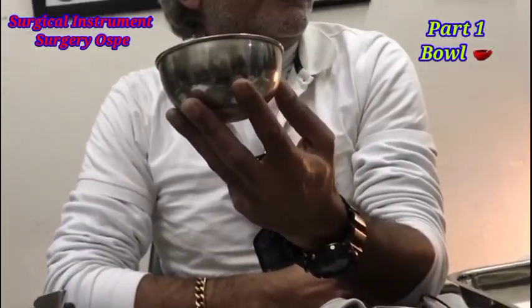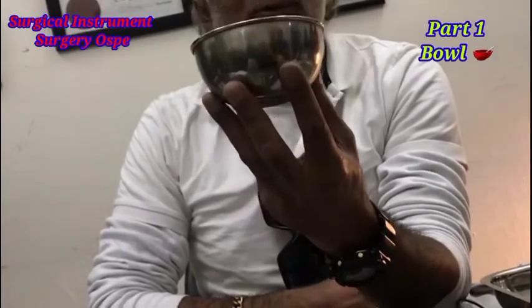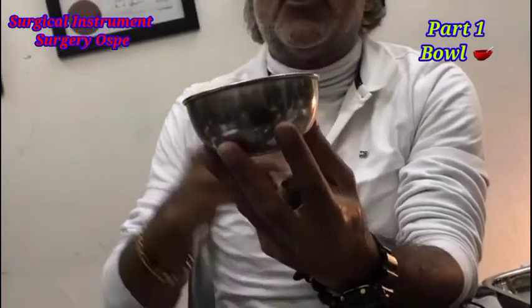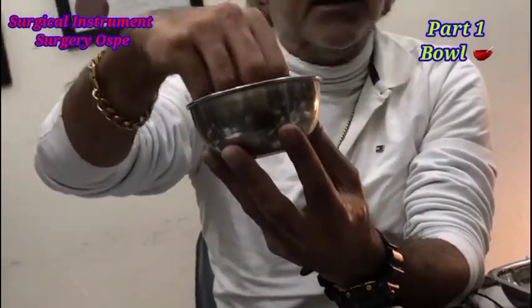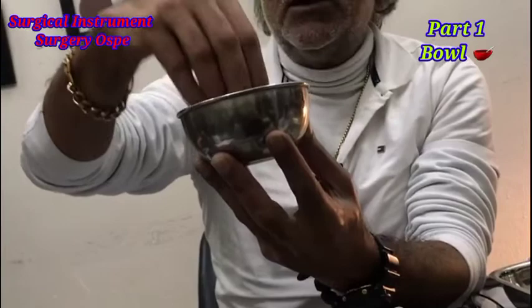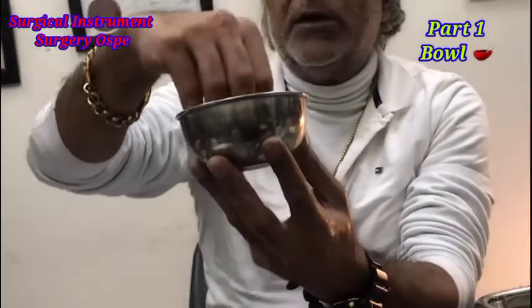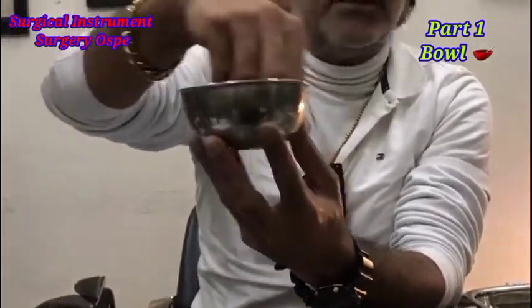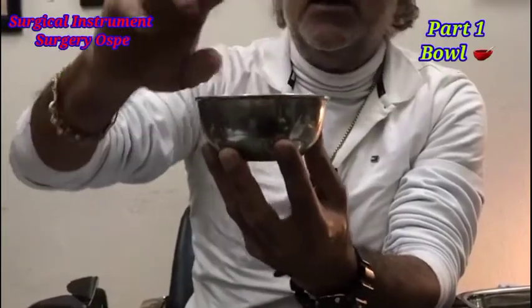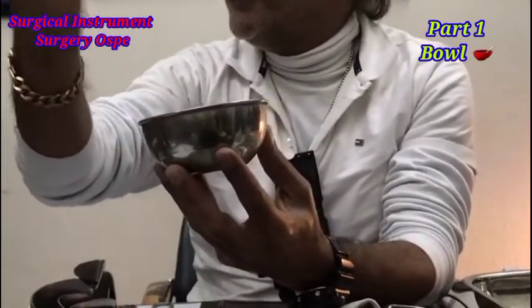You can also put ribbon gauze in it. You can put polyfax mix in it and mix it. You can pack the perianal or wound area using this bowl.